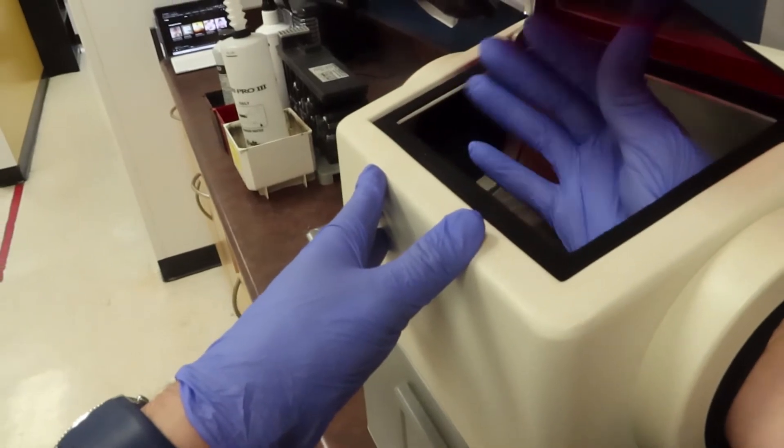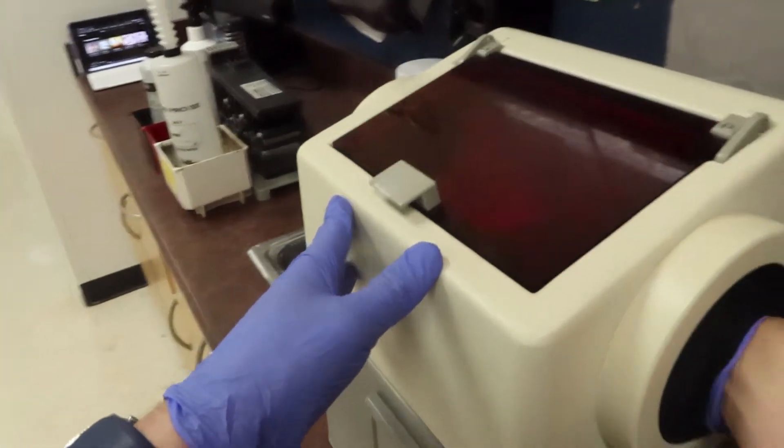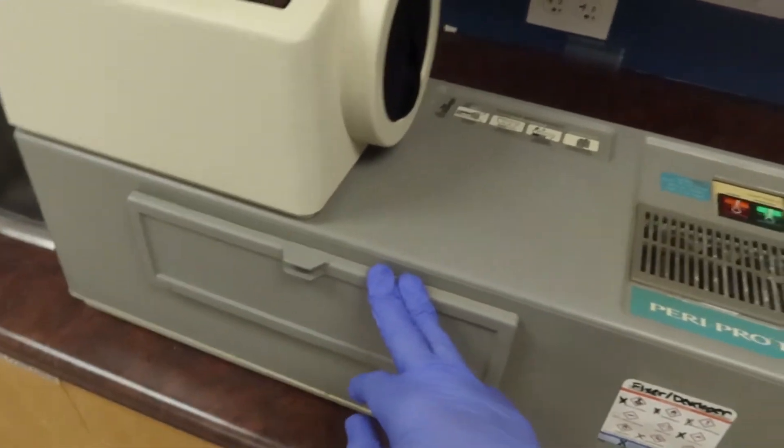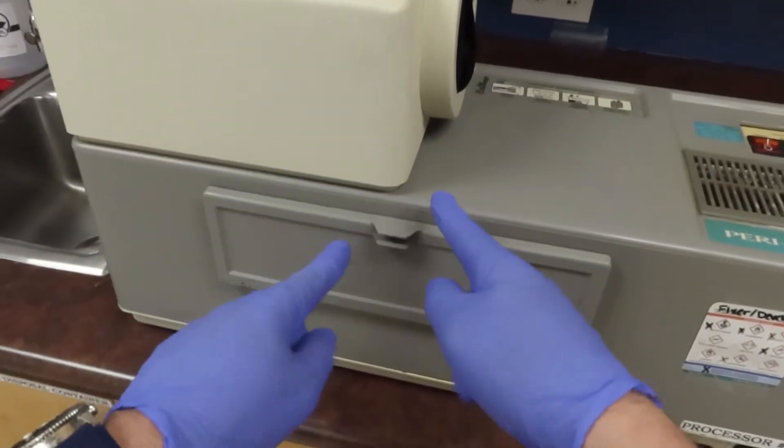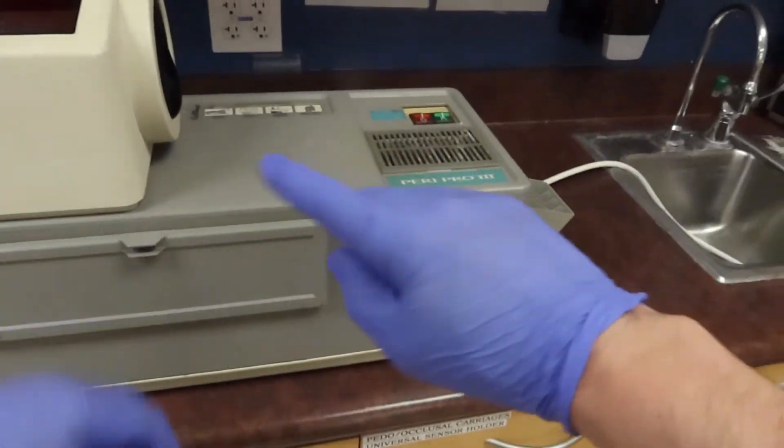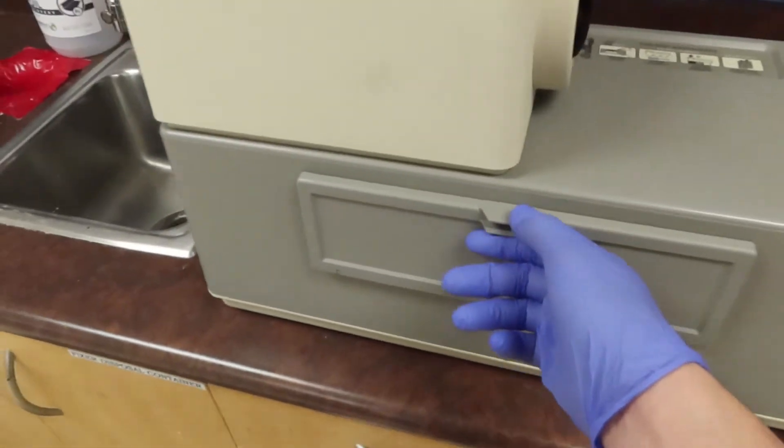If we go over here to the front, which is going to be a very dangerous spot, you don't want to open this door too often. But if you do, you want to make sure that nothing's in there and everything is ran through. So let's go ahead and open it.